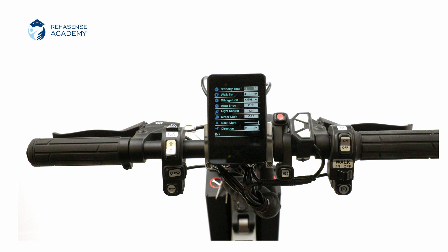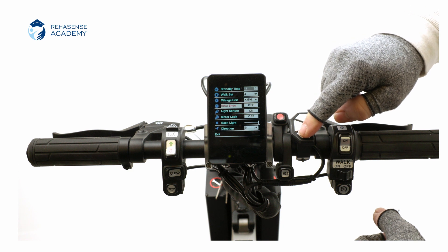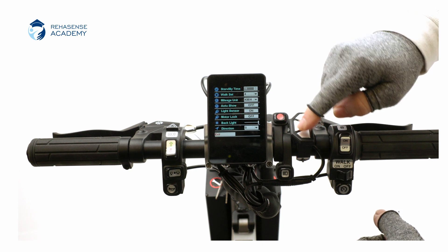The backlight is the brightness of the display. Use the minus button to scroll down to exit and press the power button to go back to the main page.